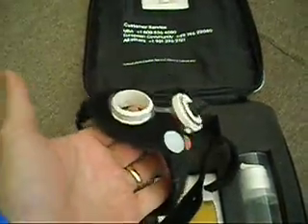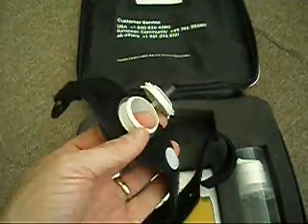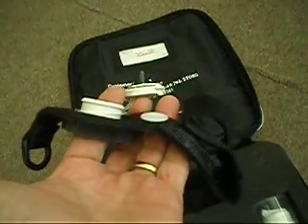I personally used it on my wrist when I had wrist surgery and on my foot that was fractured. So that is what that strap is for. Other straps are available that can be used to accommodate the shoulder or larger body parts.